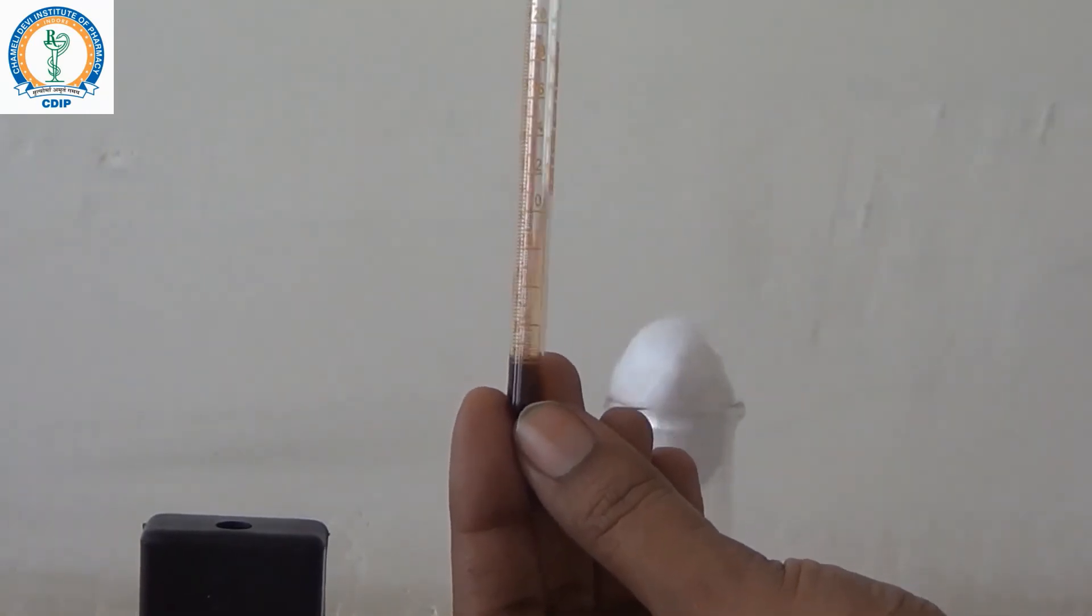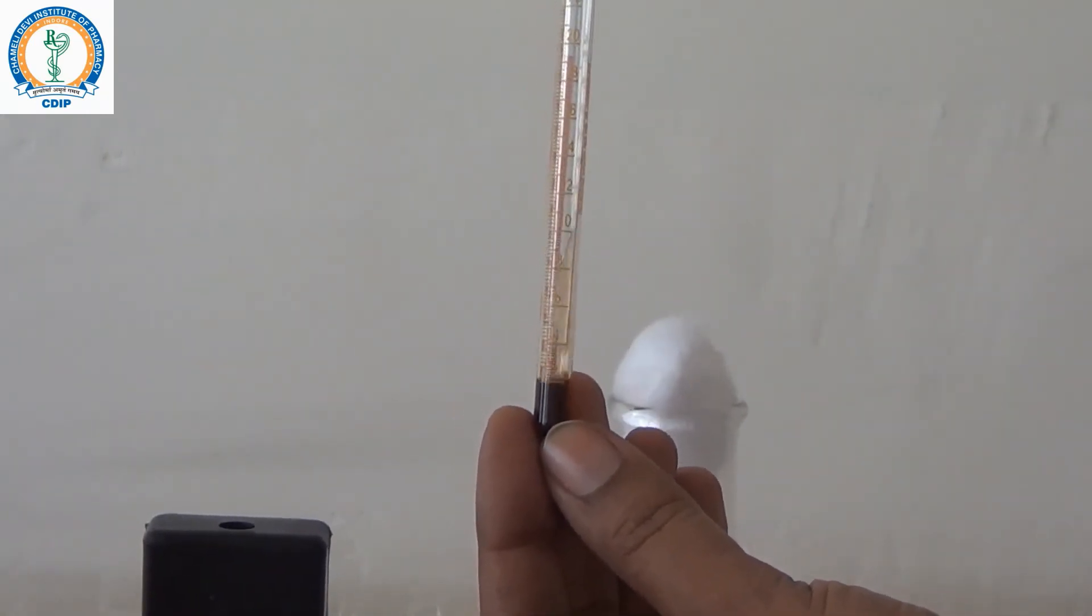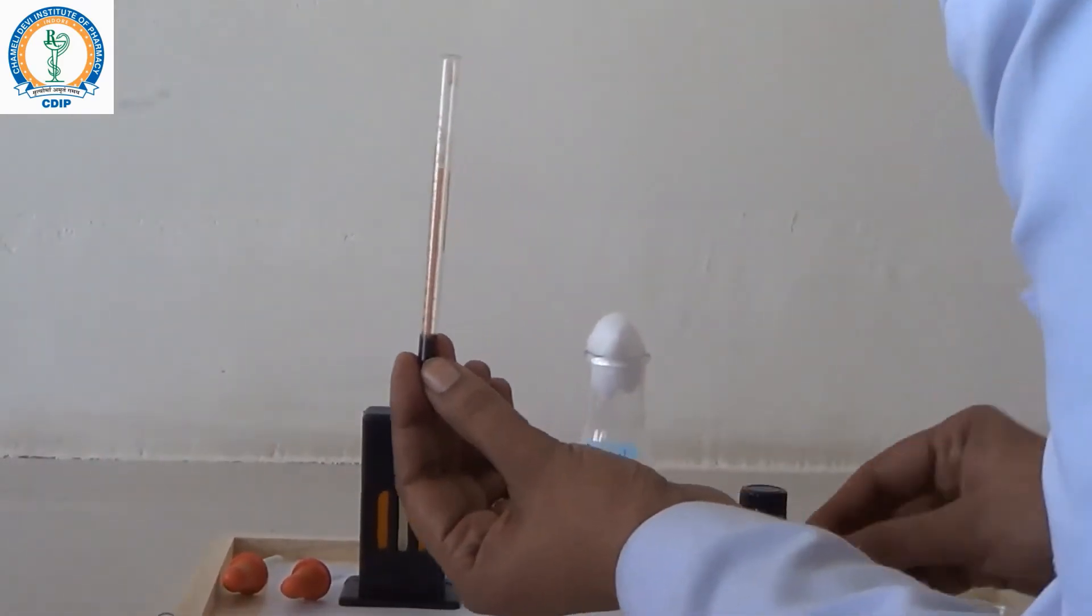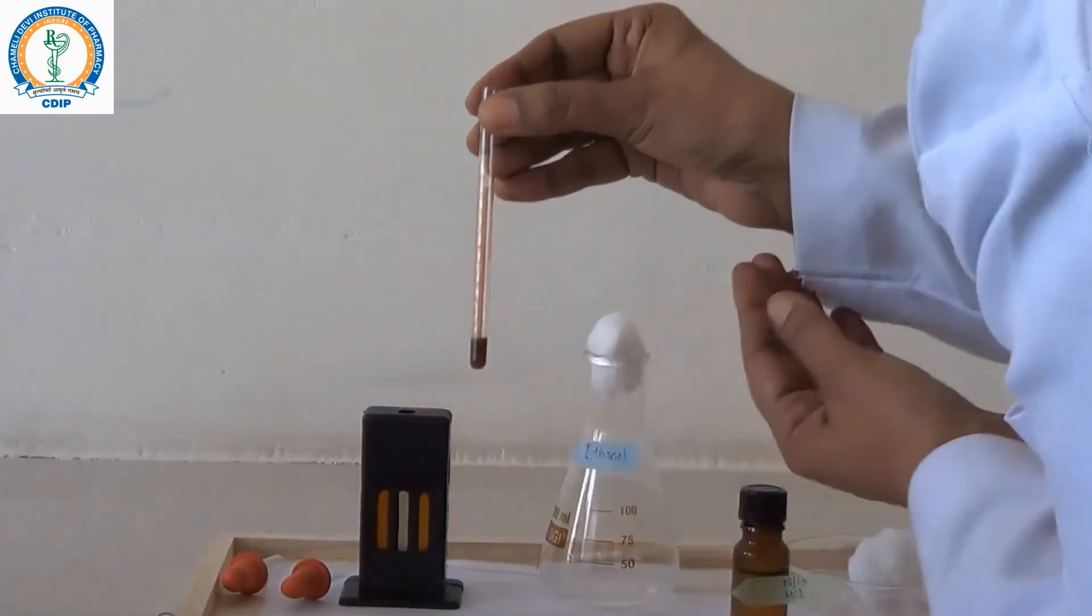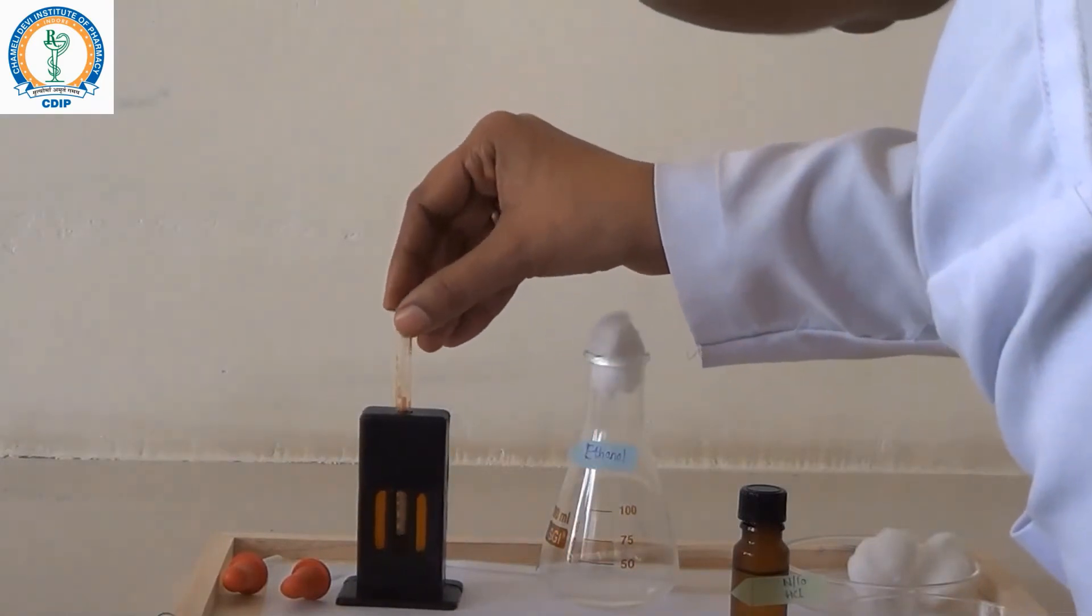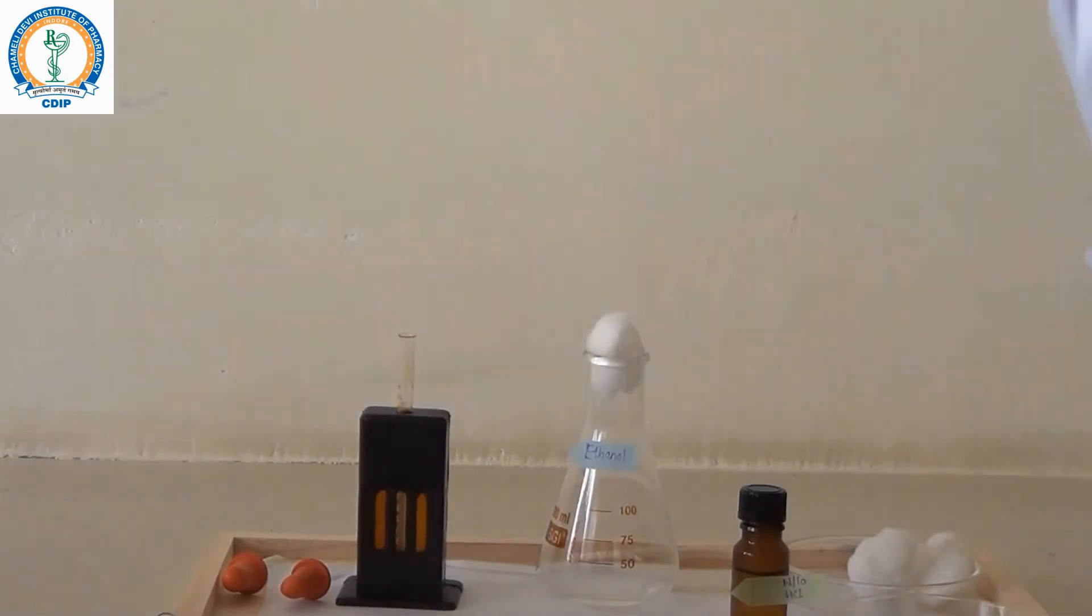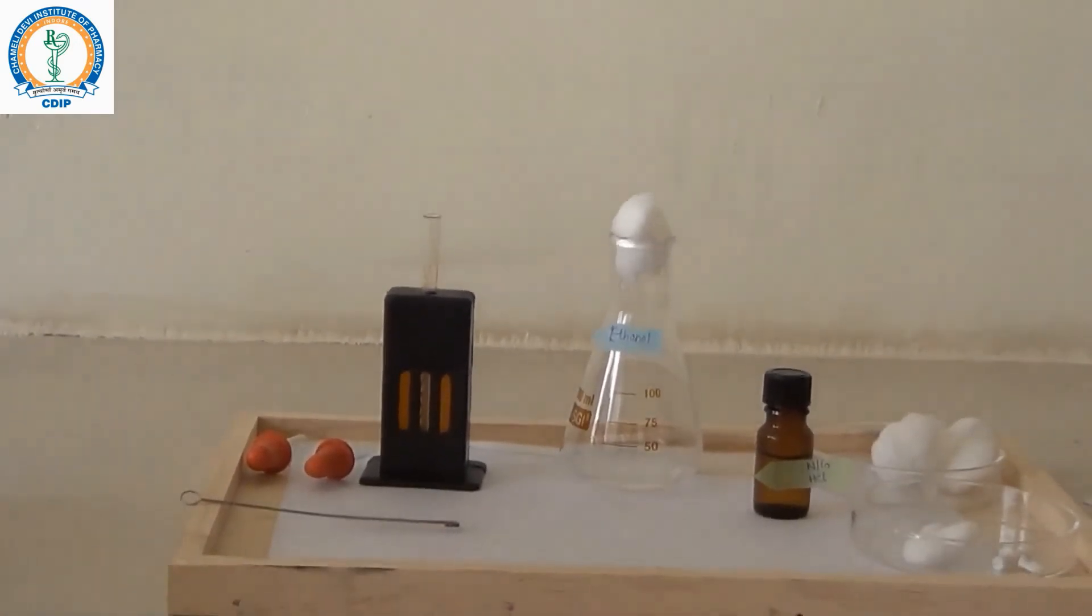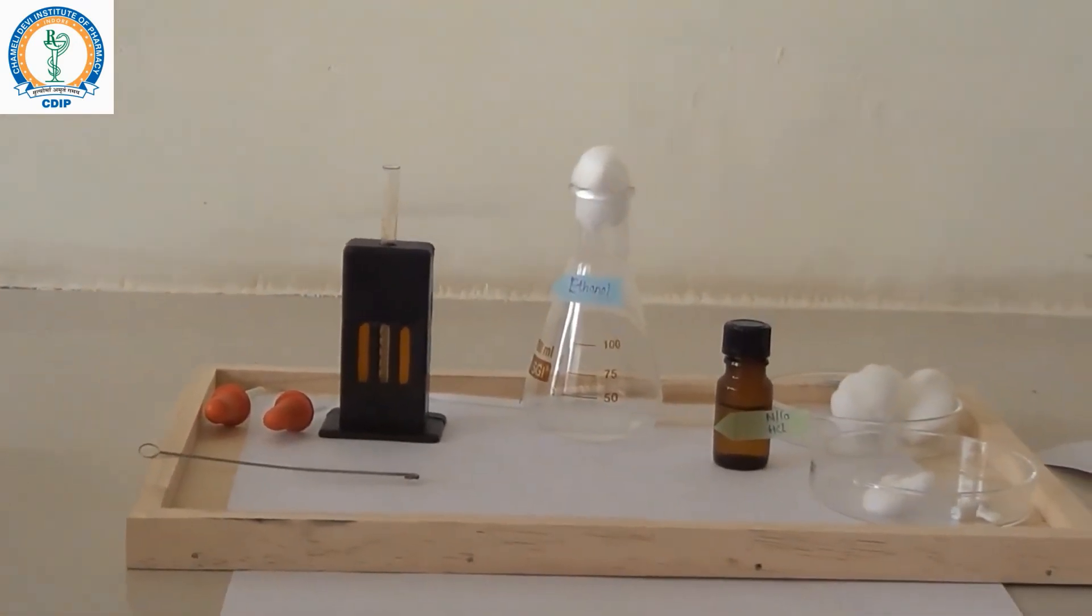Thorough mixing is indicated by the brown coloration. When acid reacts with the hemoglobin content of blood, it transforms it into hematin which gives the dark brown color.